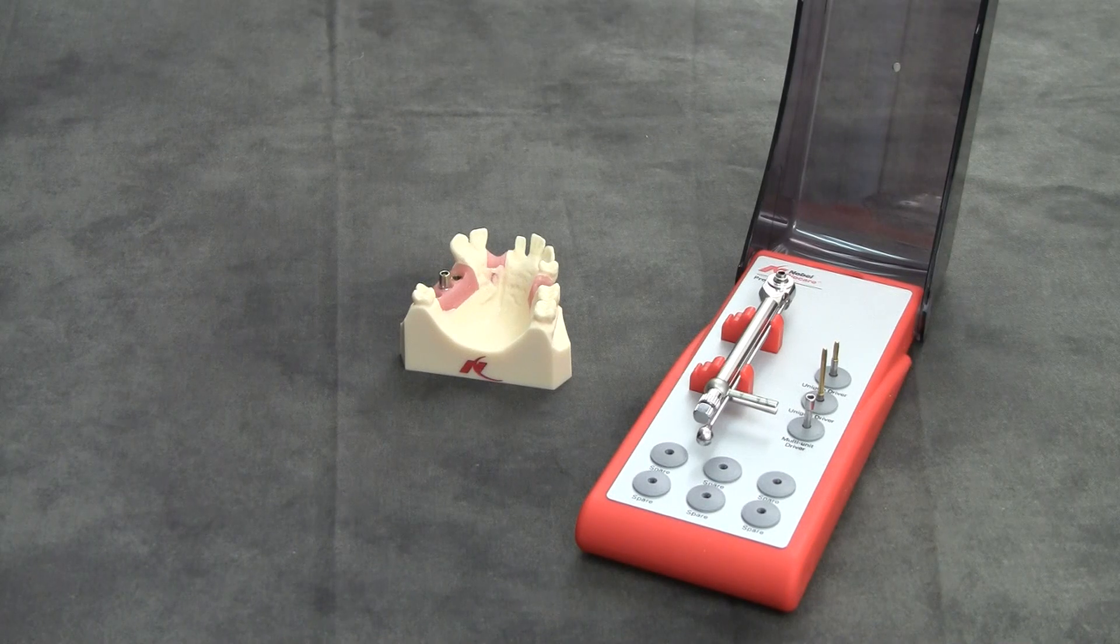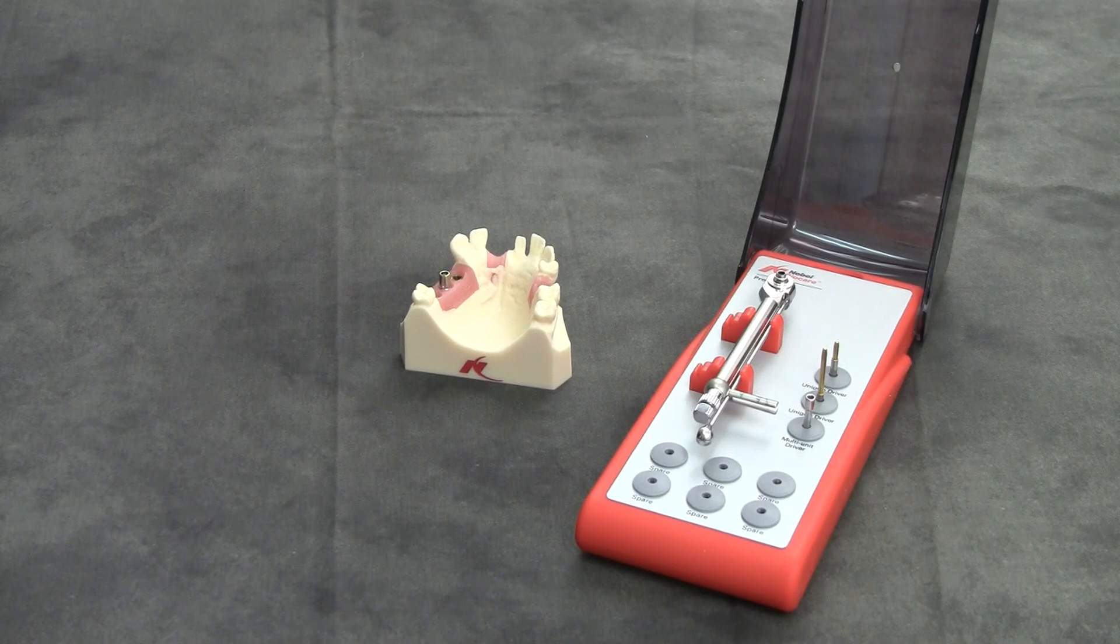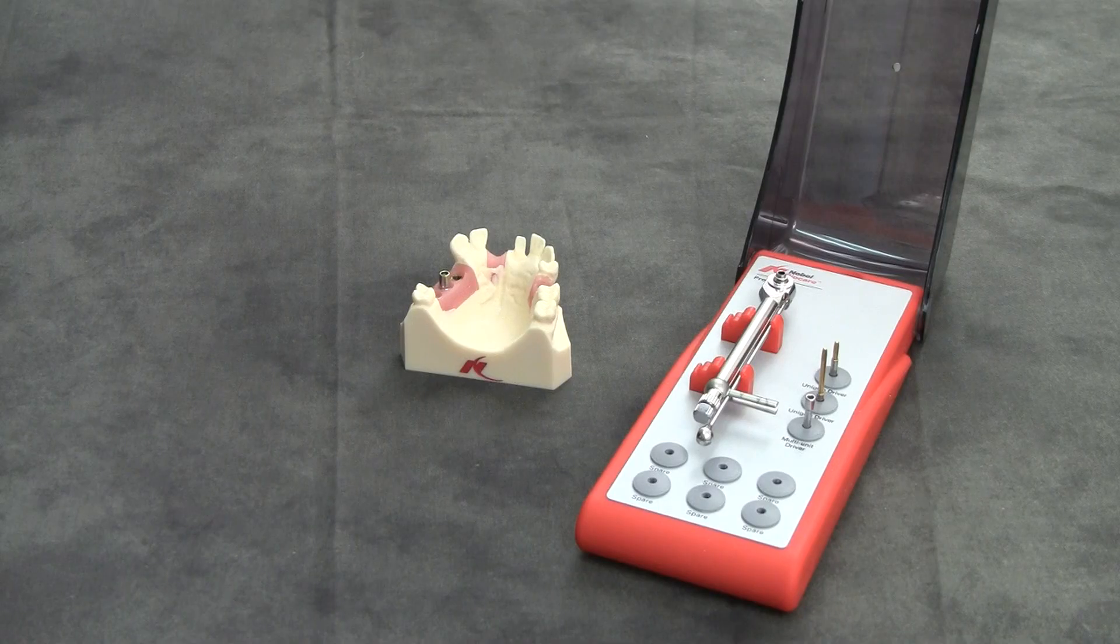In this session, I'd like to discuss the Nobel BioCare Torque Wrench and Basic Prosthetic Kit.